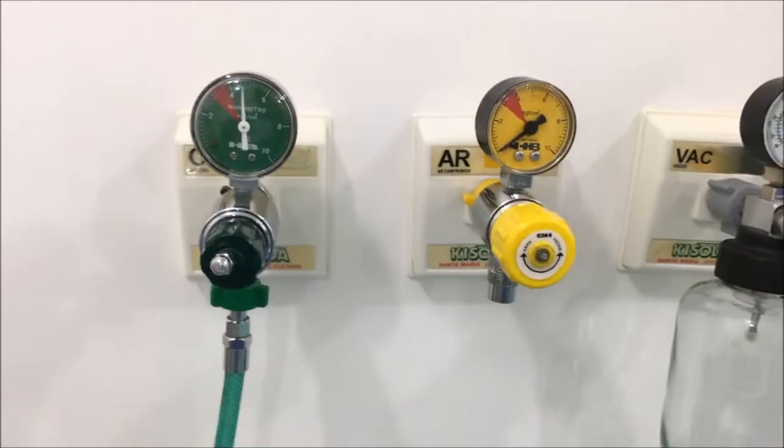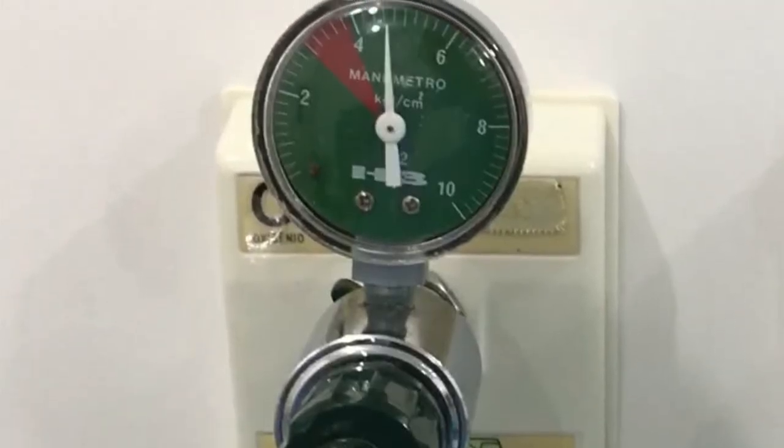Let's use the wall's oxygen. But here comes the issue, how can we measure the air pressure?